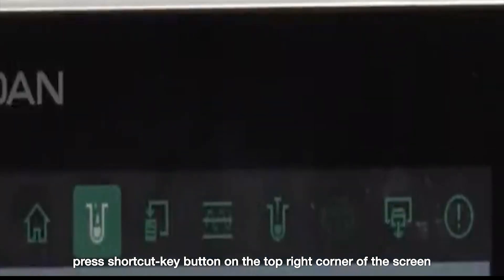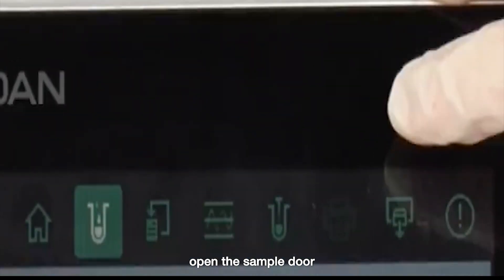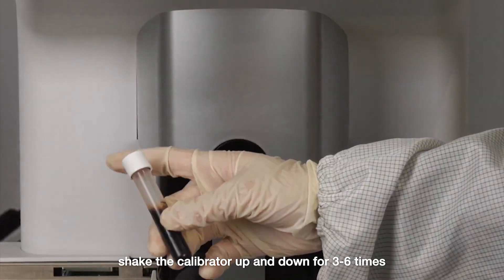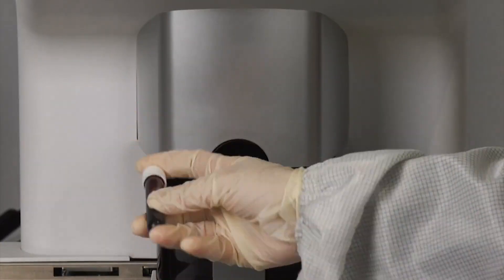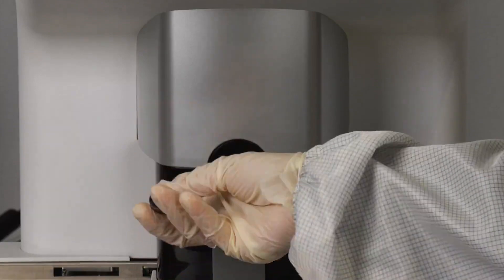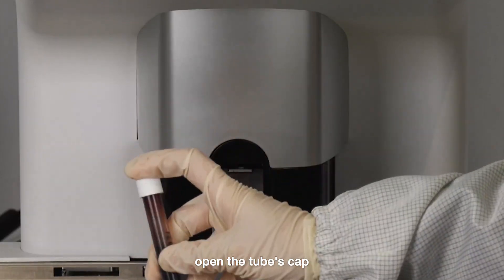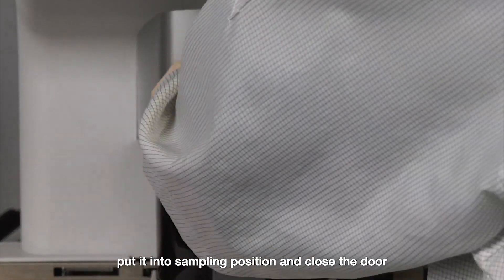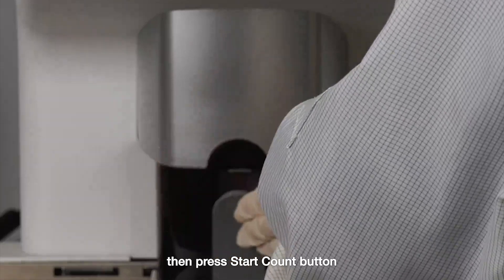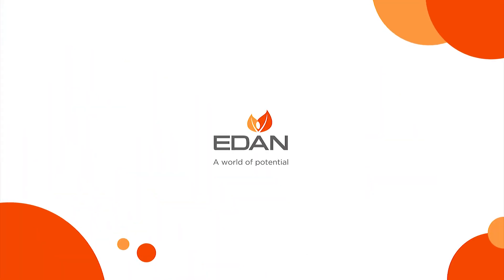Press the shortcut key button on the top right corner of the screen and open the sample door. Shake the calibrator up and down three to six times, then open the tube's cap. Put it into the sampling position, close the door, and press the start count button.